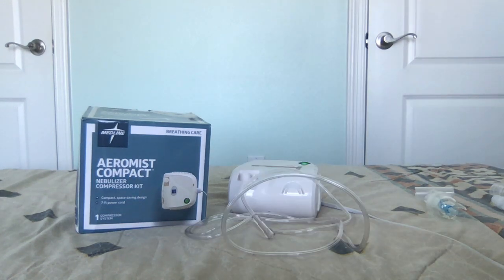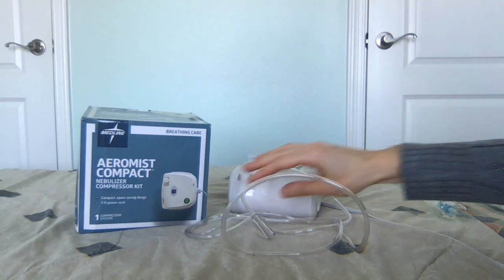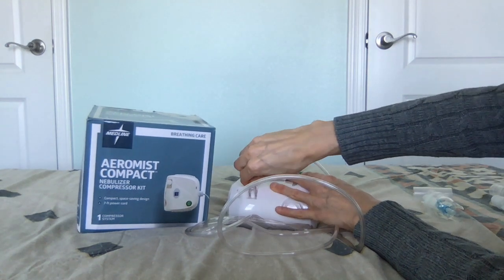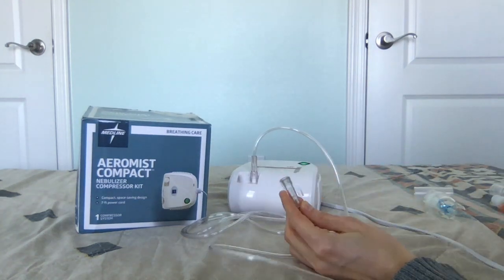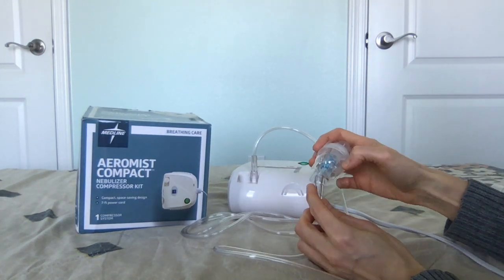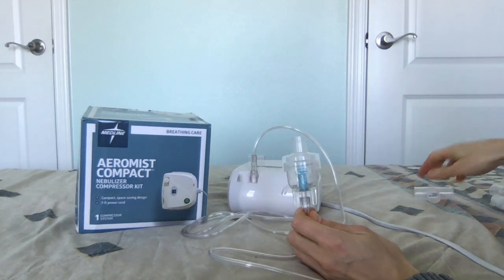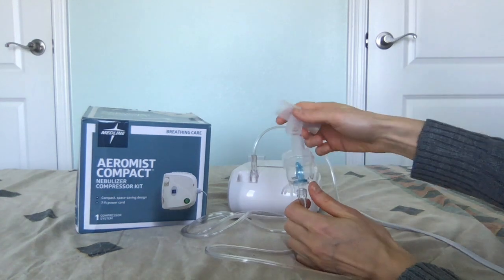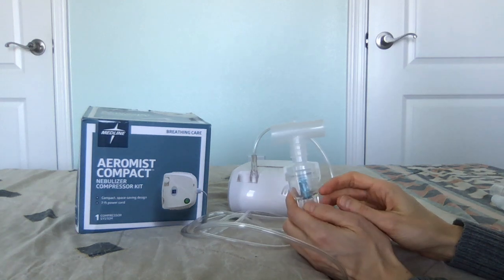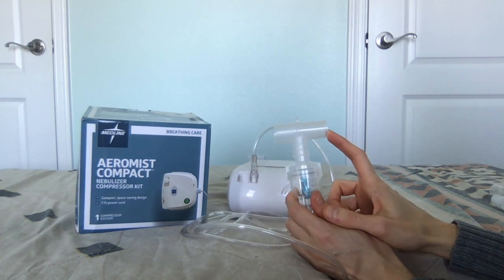To assemble the nebulizer for use with a ventilator, connect the plastic tubing to the compressor. Next, take the other end of the plastic tubing and connect it to the end of the canister. Then twist on the T-adapter. Once the T-adapter is on, connect it to your ventilator tubing.